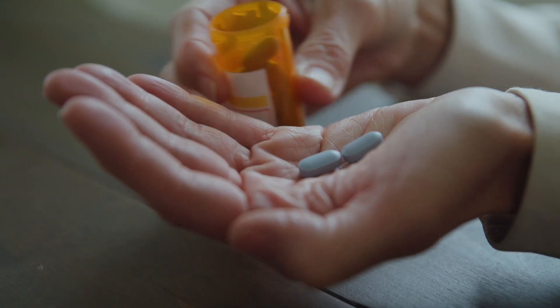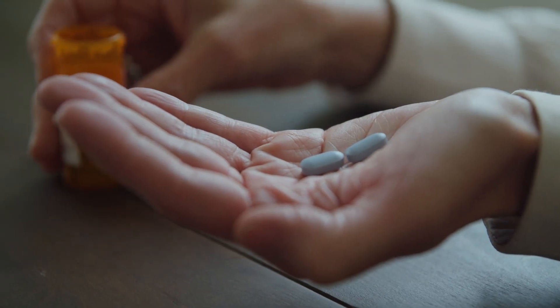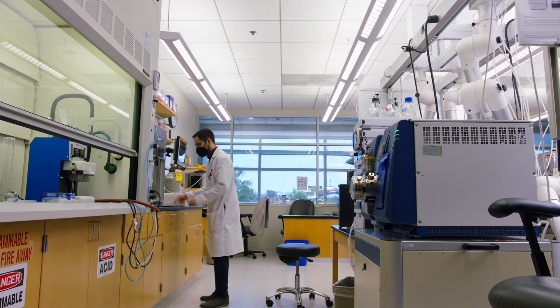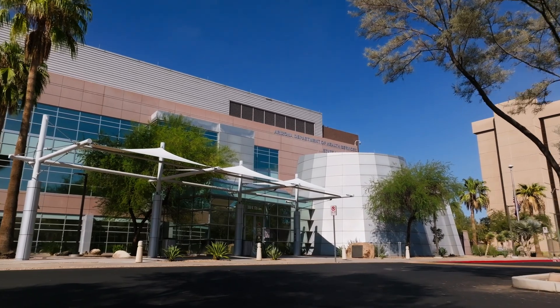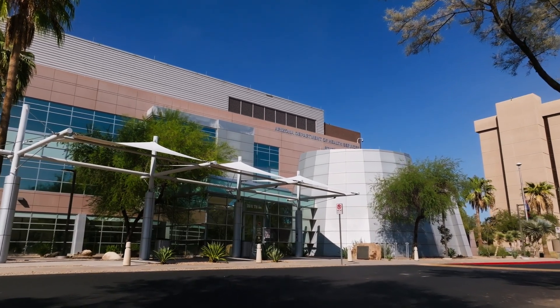Drug-resistant strains are not yet widespread in the United States, thanks to our vigilant surveillance. The Arizona State Laboratory is the primary testing facility for drug-resistant tuberculosis in our state.